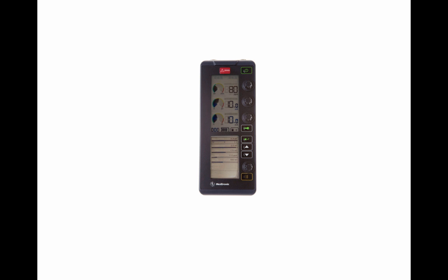We're going to go over some of the components right now. There is a competency associated with this device, and so I'm going to go over each competency component in greater detail.